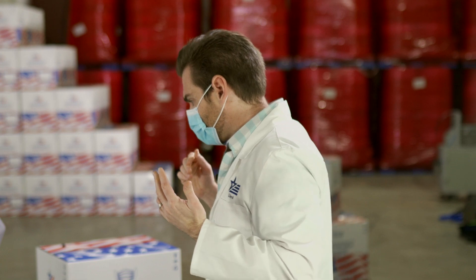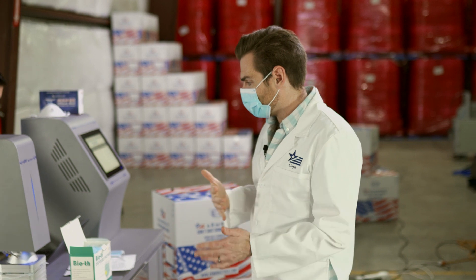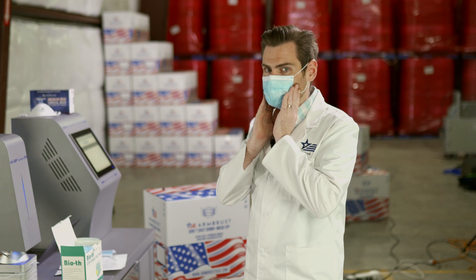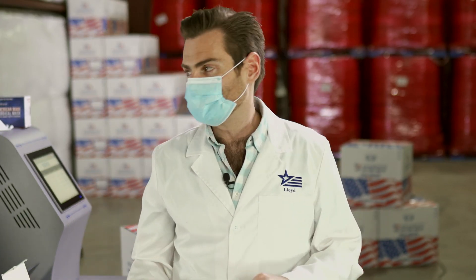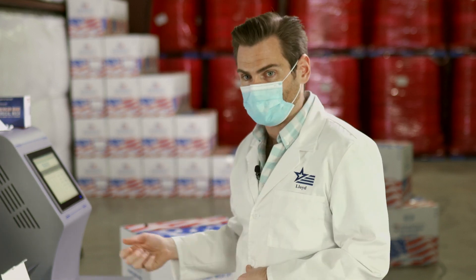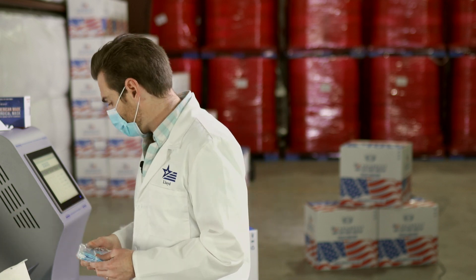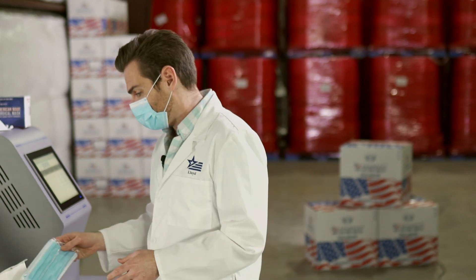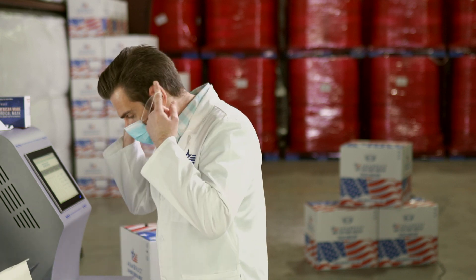This has a little bit of a smell, but it's not terrible — more in that new-iPhone category of smells. I can tell it's not as breathable as a normal mask, but if you're just going to use this to go into a grocery store or keep them in your car, it's a pretty good option. I would not wear this for more than a couple hours because of the breathability, but the smell isn't terrible and I like the individual packages.